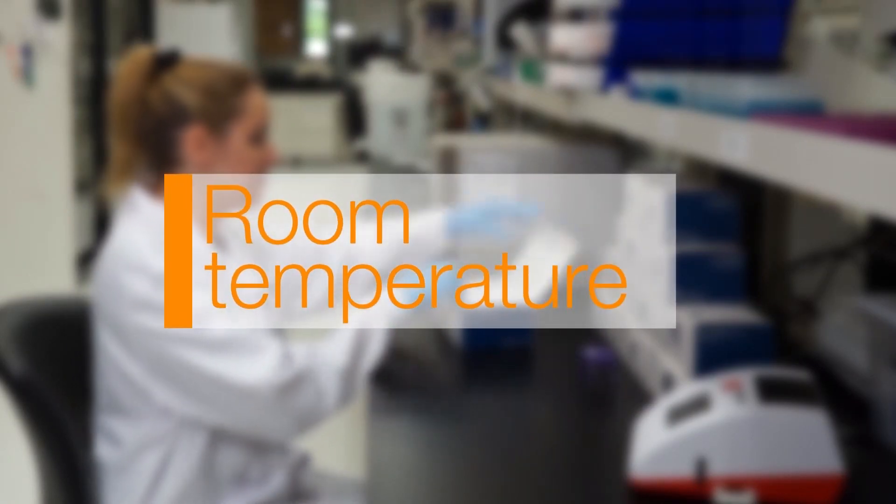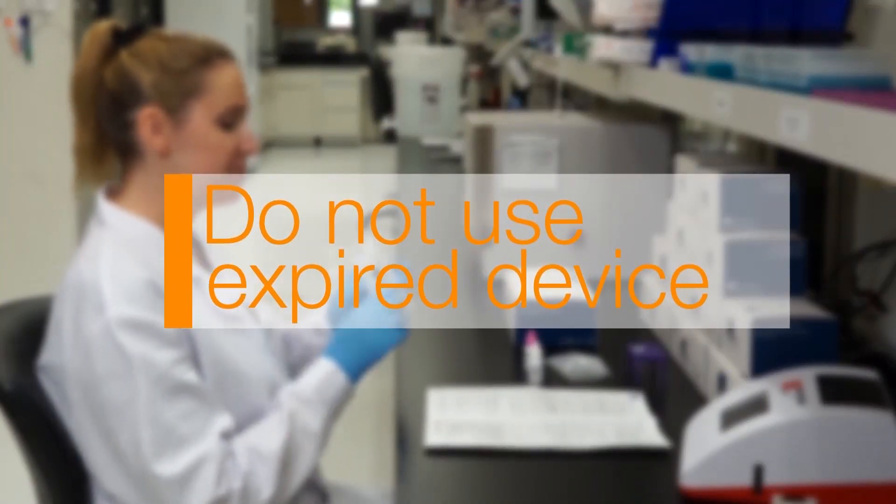Make sure that the sample and test device is at room temperature prior to testing. Before utilizing the test strip, make sure to check the expiration date.